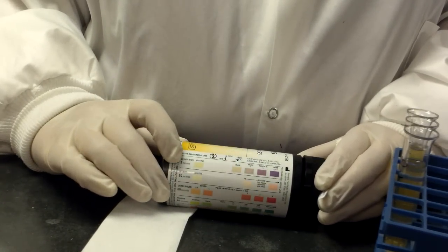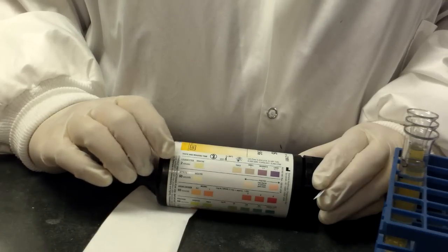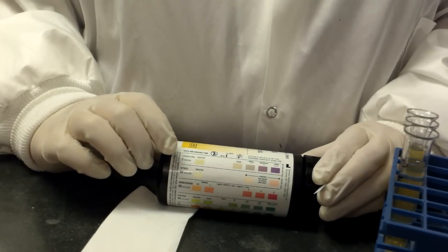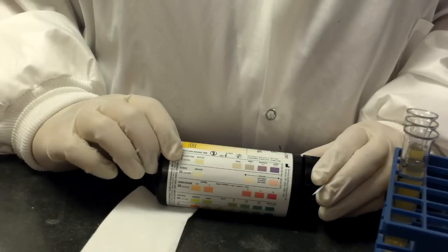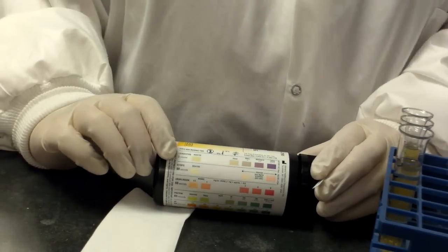The only exception, the leukocytes. You do not want to read the leukocytes until it's been a full two minutes. Often there will be one, especially on a practical, that won't turn positive until the very end of that time.